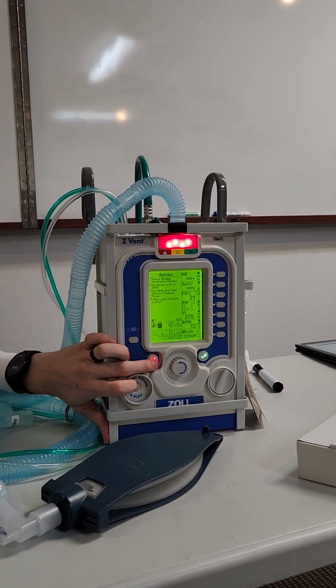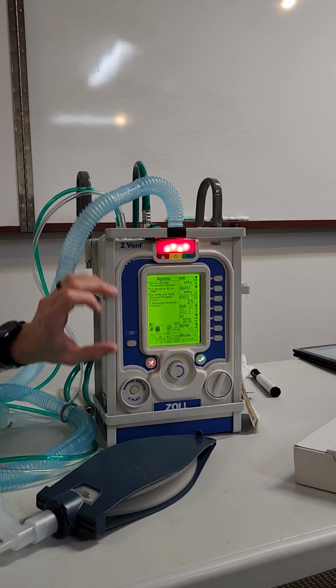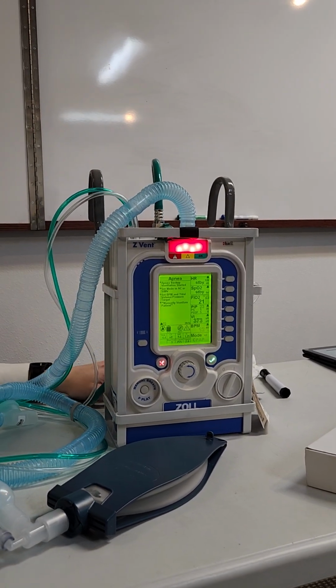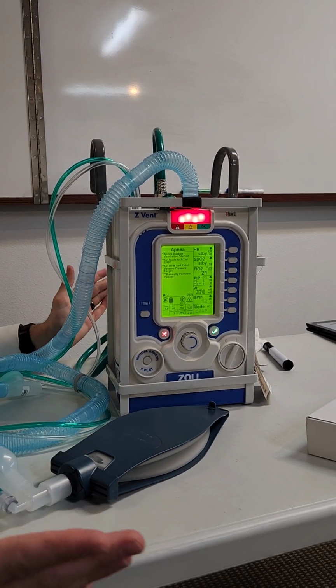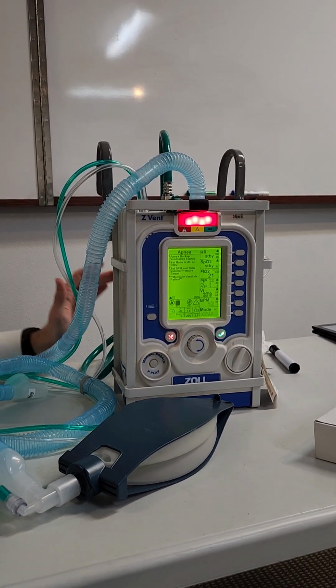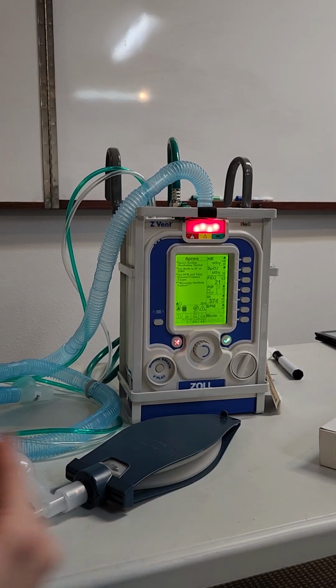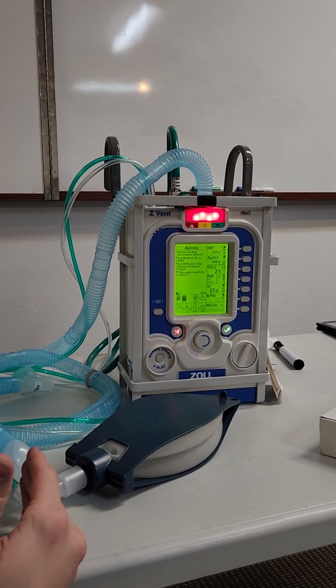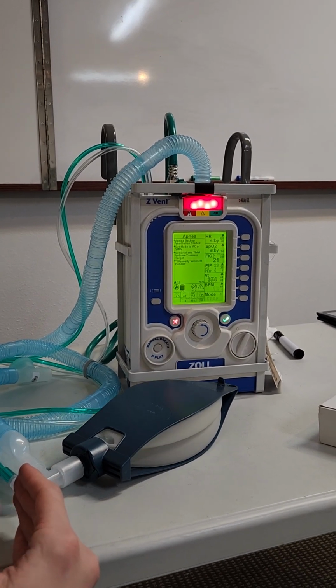I've missed something somewhere then. You don't want anybody to be breathing less than 12, ideally, right? Right. But sometimes for a small period of time, they might be, because it's not taking your breaths over a minute, right? It's taking it over a certain amount of time. Okay. So maybe you have a short period of apnea for like 30 seconds.